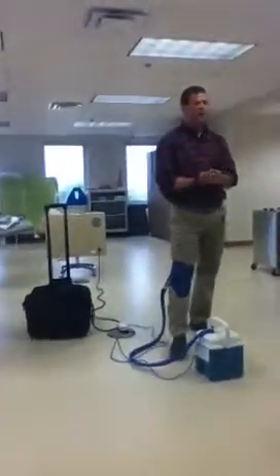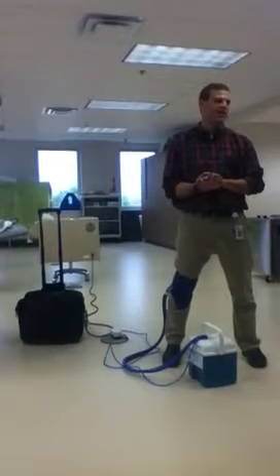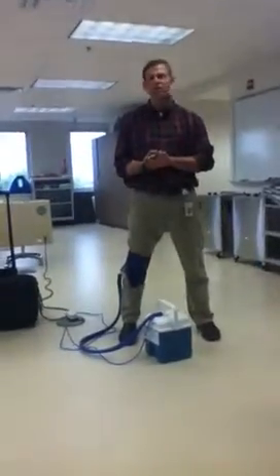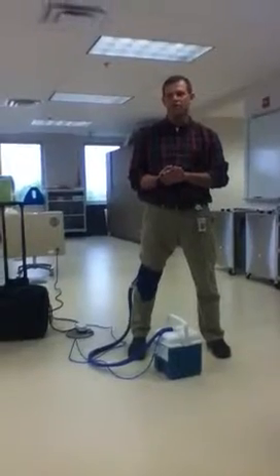They make a lot of different styles. I would tend to tell people to use it a little bit like an ice bag — 20 to 30 minutes on, 30 to 40 minutes off. But sometimes the physicians will tell them they can just run it all the time.